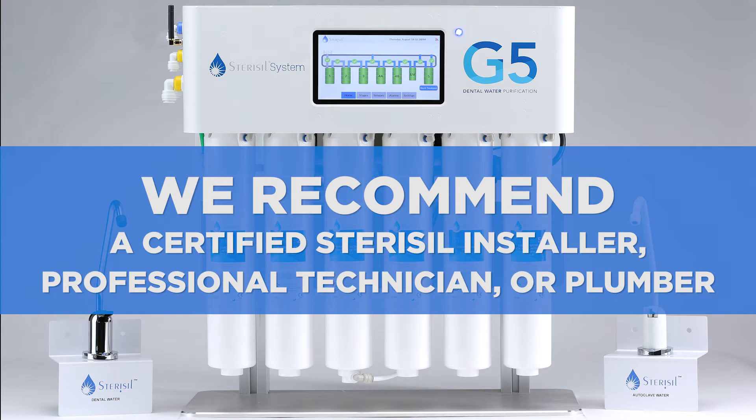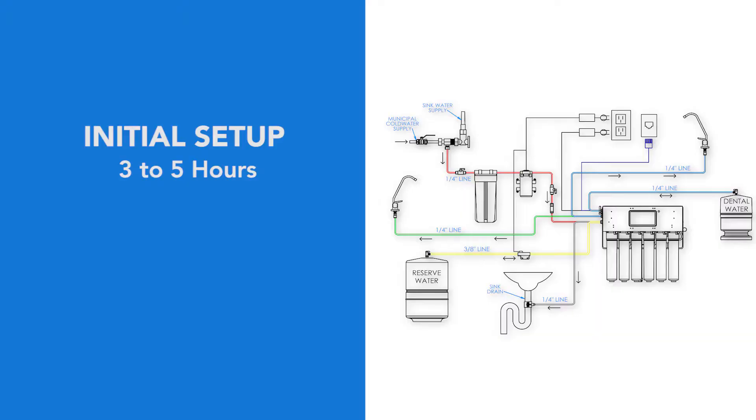We recommend a certified Sterisil installer, professional technician, or plumber familiar with dental offices perform the installation since interfacing with a cold water line and drain is involved. The initial setup can take up to three to five hours depending on customer specifications. The complete installation will require up to two days to complete.